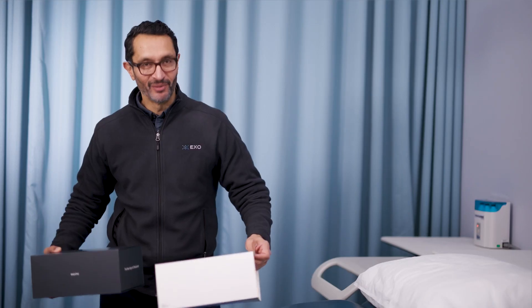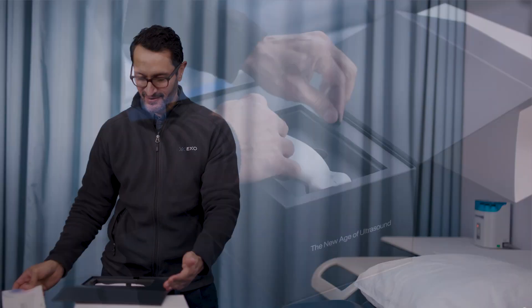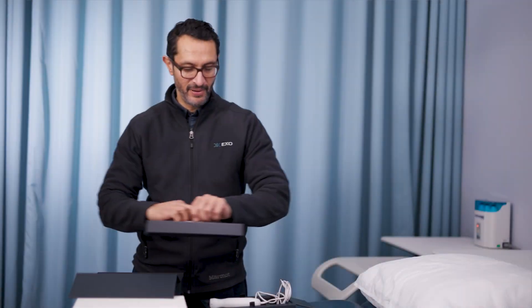I'm going to walk you through how to use your Iris. It popped open with a simple instruction card. Take your first tray out and right away you're ready to roll with your Iris. The second tray pops right out.